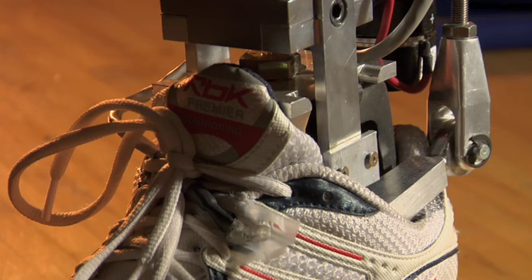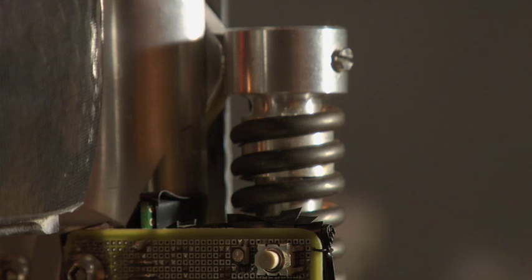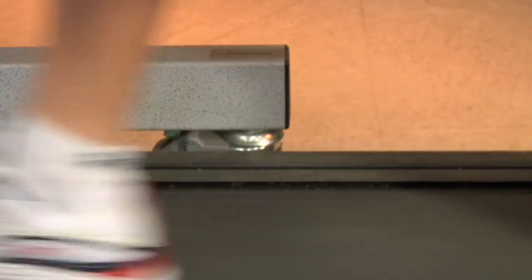The uniqueness of it is the way we store and release energy. As the leg rolls over the ankle, or as the human body falls forward, we catch that energy and store it in the springs, and the springs return that energy right back at the ankle joint. It doesn't have to anticipate conditions — it's responding every millisecond, measuring what you're doing. There's a continuous algorithm that decides what it should be doing at every millisecond, so it won't make jumps between stairs and slopes. It's always smooth.